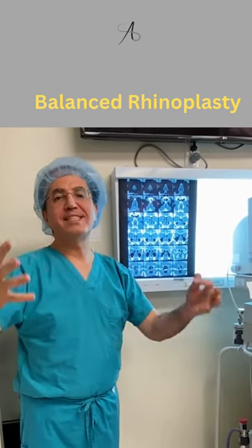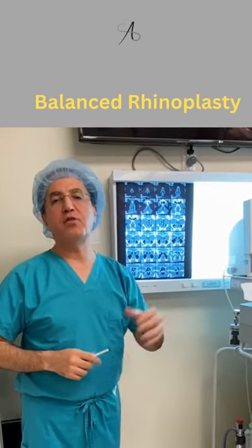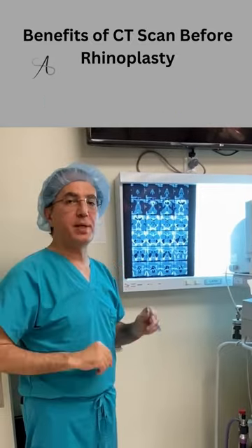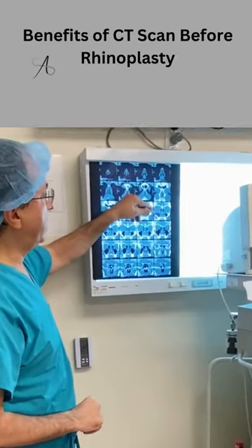Today I'm going to show you what a CT scan can provide as far as information regarding anatomy deep within the nasal space.